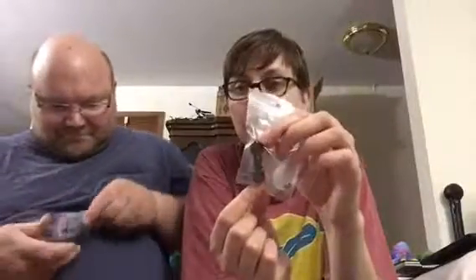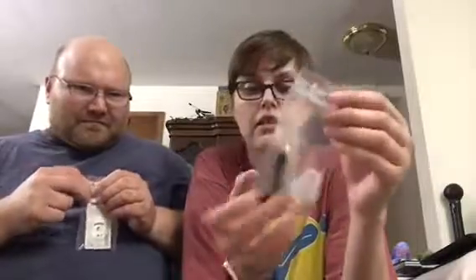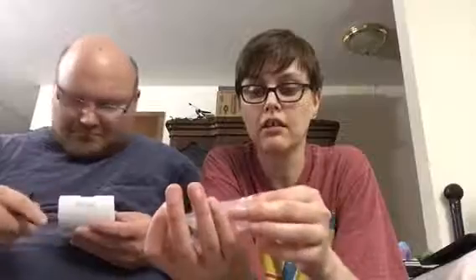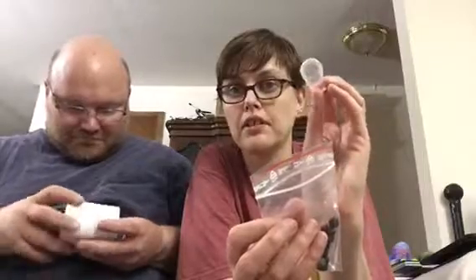It's probably what I'll use to cover it when I dye my hair. I guess you use this to test the abutment or the sound processor without putting it on - I'm not sure, I haven't really looked thoroughly through the book. I just know it said you test it to make sure the batteries aren't dying.